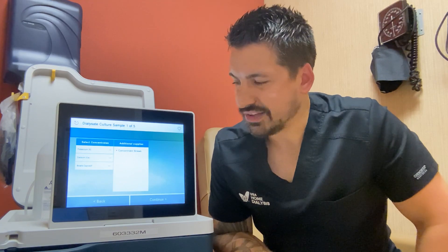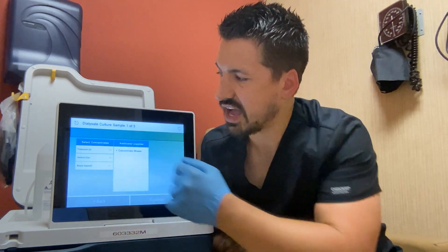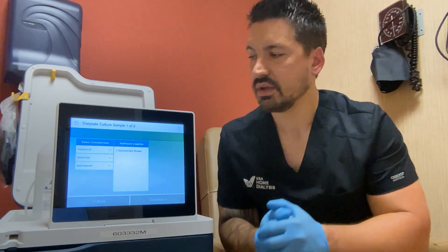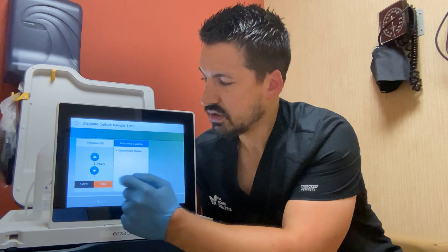The machine is now starting to prep the water in anticipation of culture collection. The next screen says "Select Concentrates" — the machine needs to know what dialysate bath you are on. I just read it off the jug, but if you're on a 2K bath you'll select 2K; if you're on a 3K bath, select 3K accordingly. Since we have the 2K, I'll push the potassium button — you can see it automatically defaults to 2. Most patients are on a 2K, so we'll hit save.